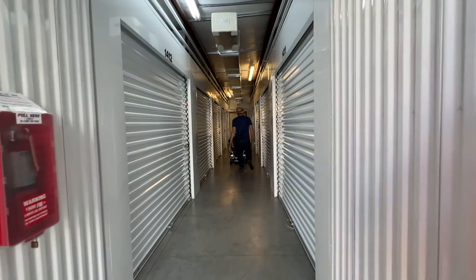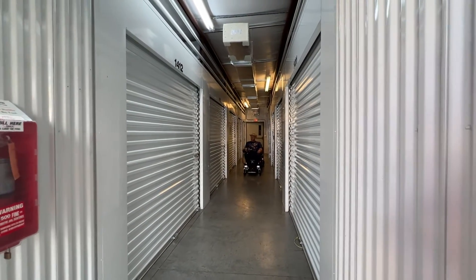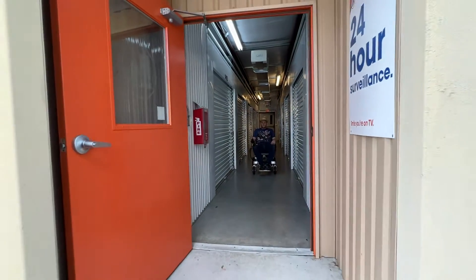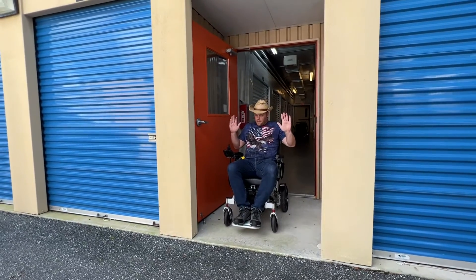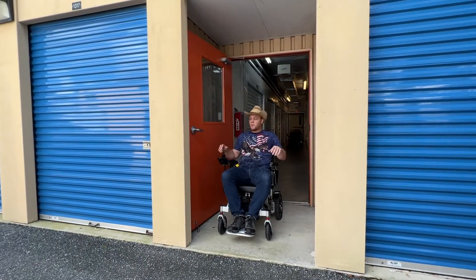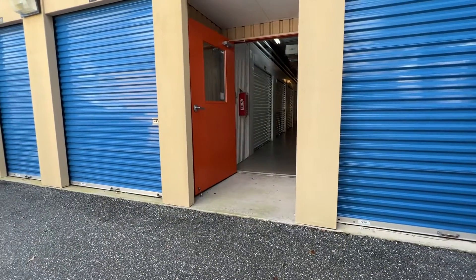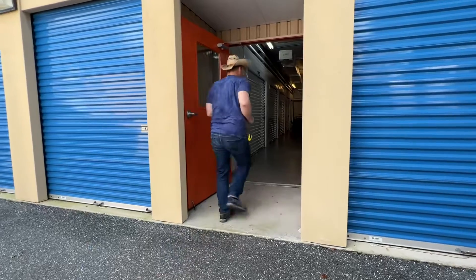I'm going to go one after the next. Let's see how long this one takes to stop from full tilt. This chair took less than five feet to stop — that's a pretty good result from full tilt.